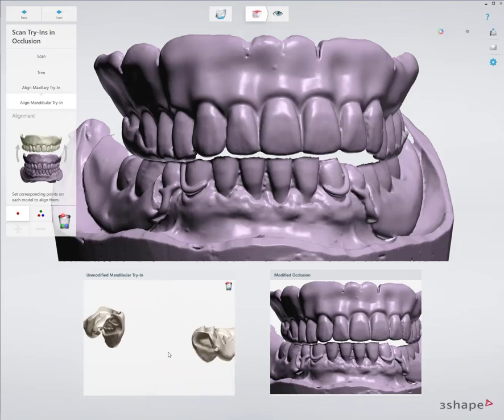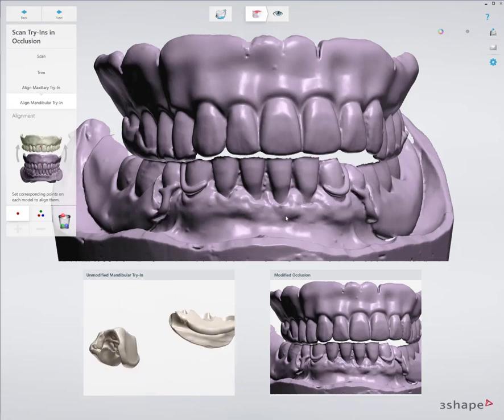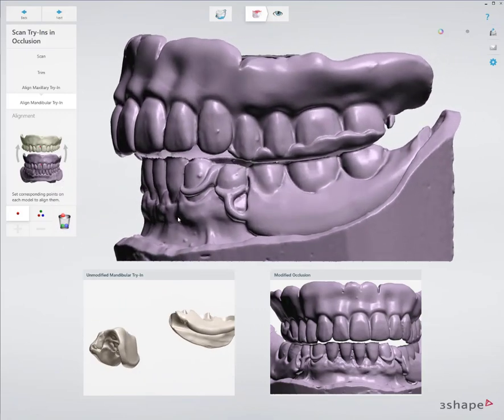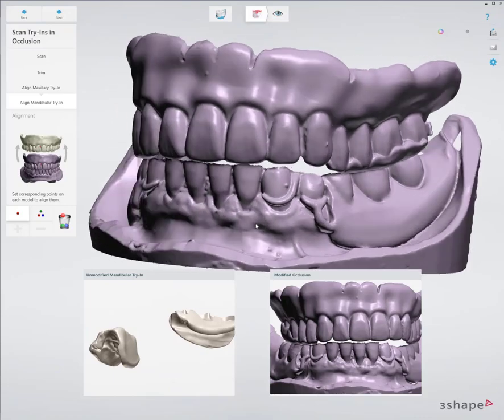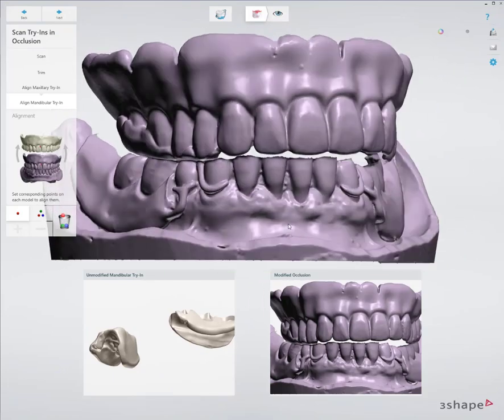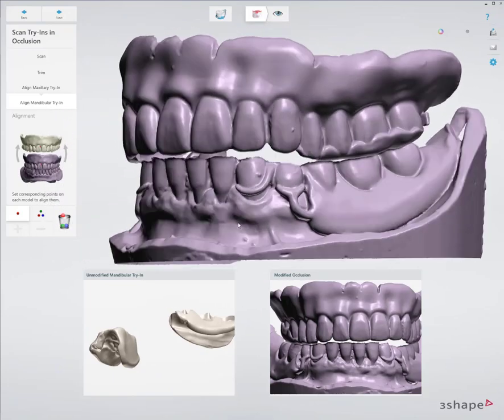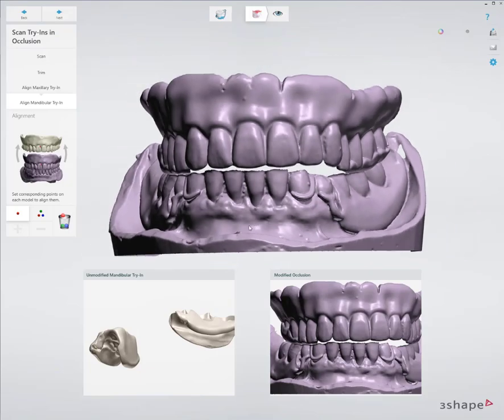Now the issue with that is I have hand waxed these bridge teeth onto this model. So all I produced was a bridge of teeth and then I waxed them on, so I don't have anything to align them to.